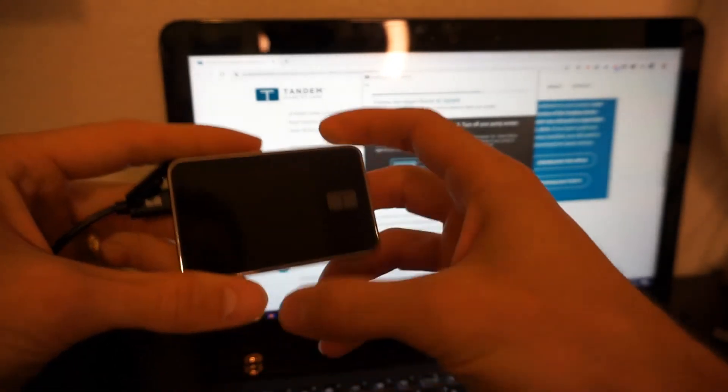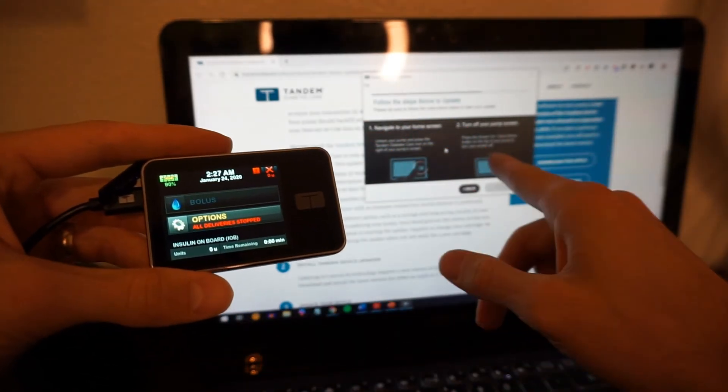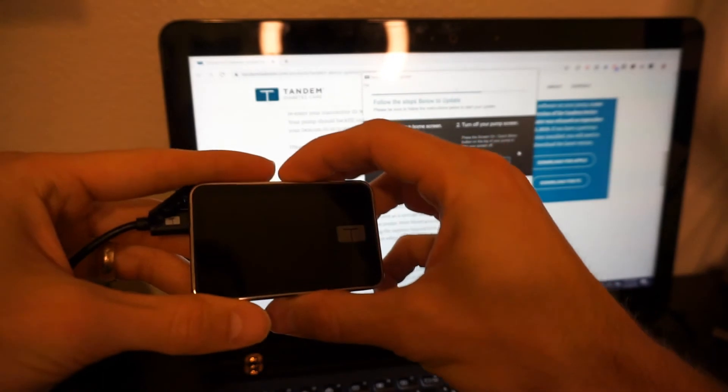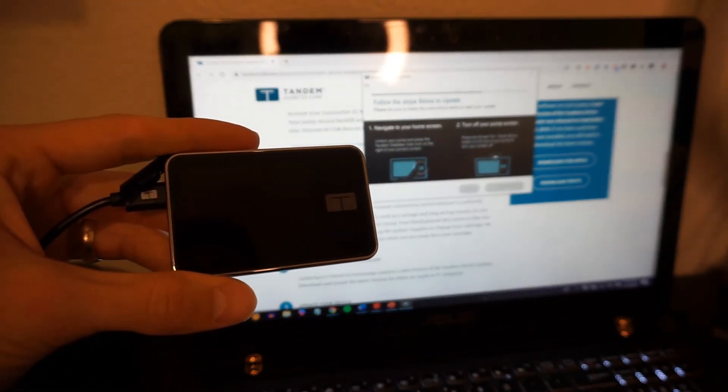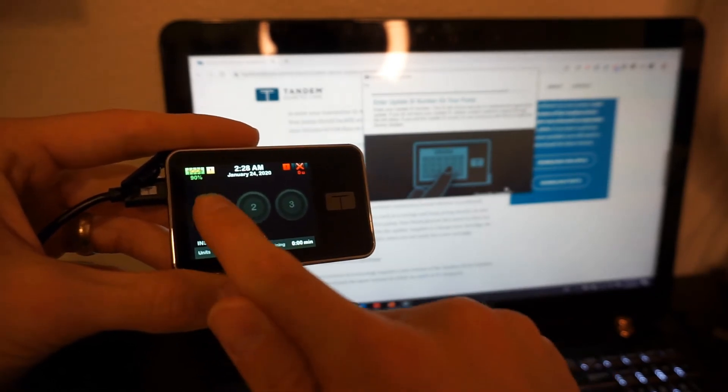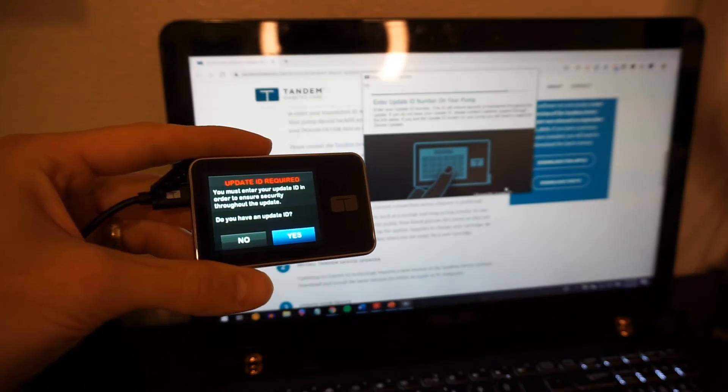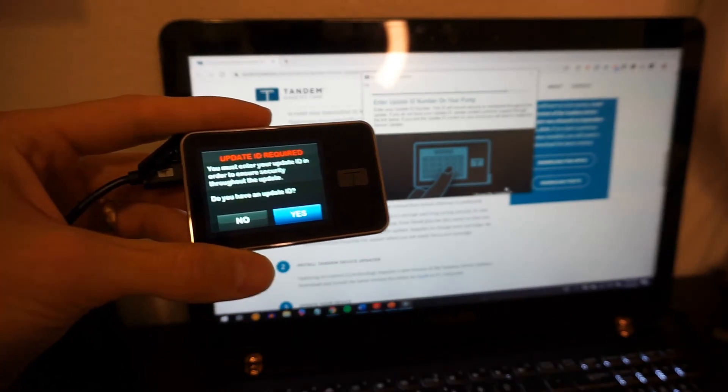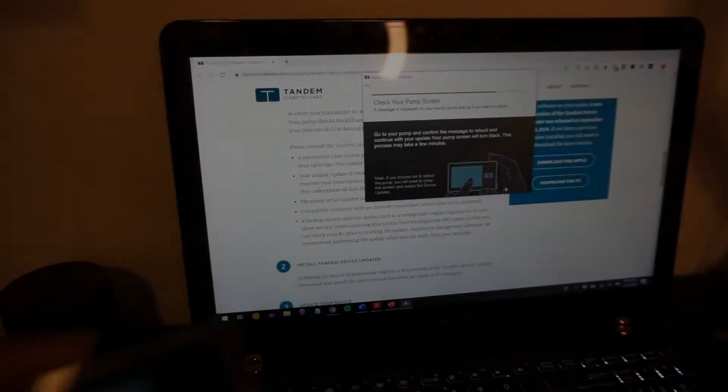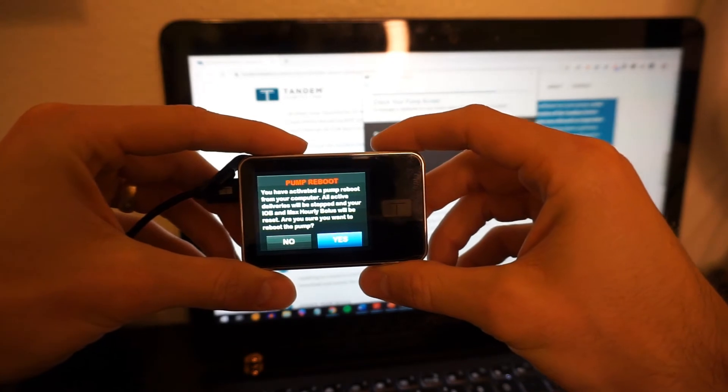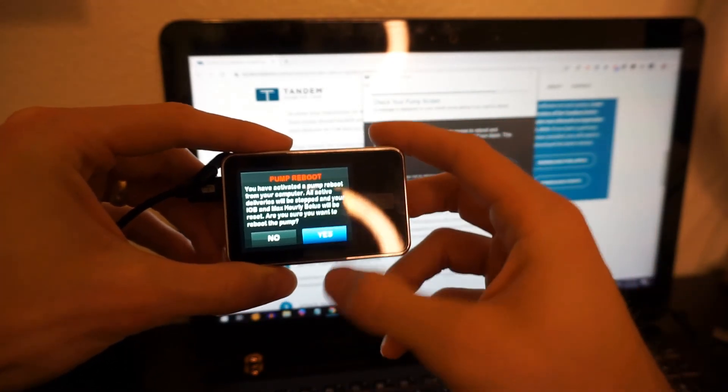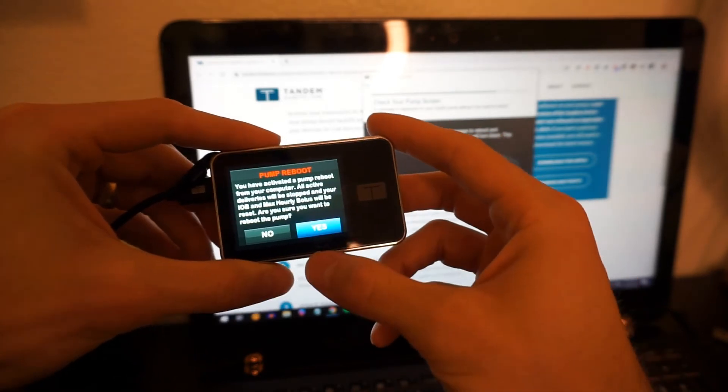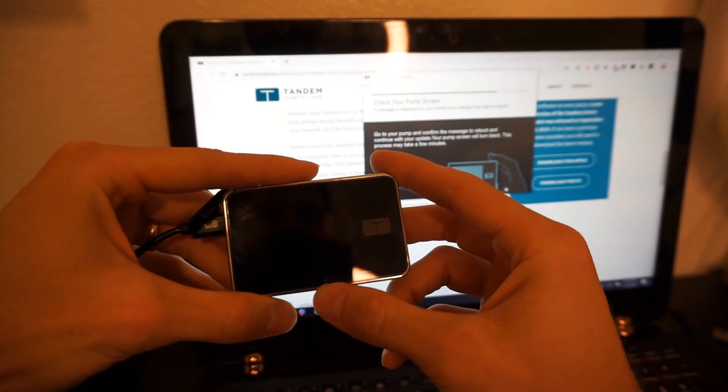Navigate to the home screen. We are there. Turn off your pump screen. Turn that screen off and update. I think... So now is where you got to find your update ID. I've got the email on my phone. I'm going to grab that and then rejoin you guys. And to document the next step of the process, it says now we have a pump reboot that I have to agree to. So all active, everything is getting reset, right? So hit yes. And see what happens.